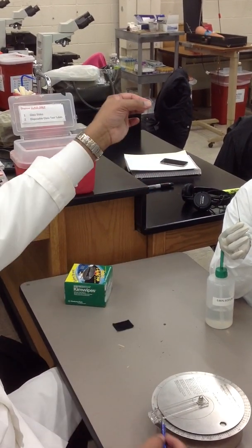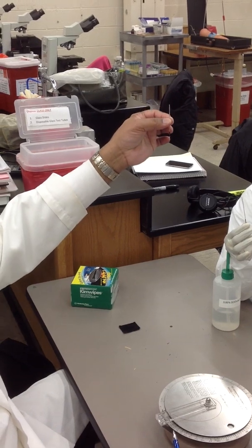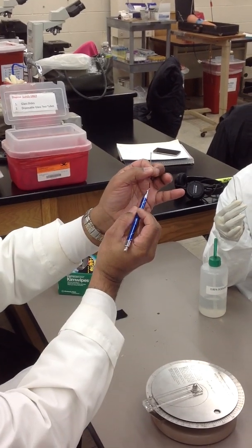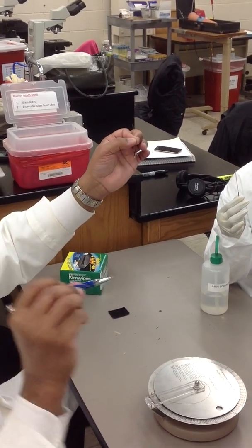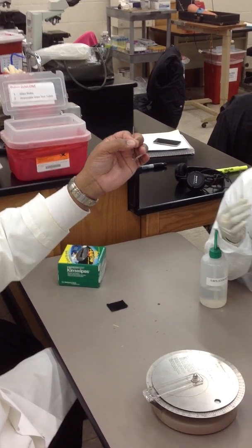And then in the bottom, that's the... right? Where you see the putty, right? So, we don't measure the putty. So, we measure where the putty cell interface is. Everybody see that? Mm-hmm.